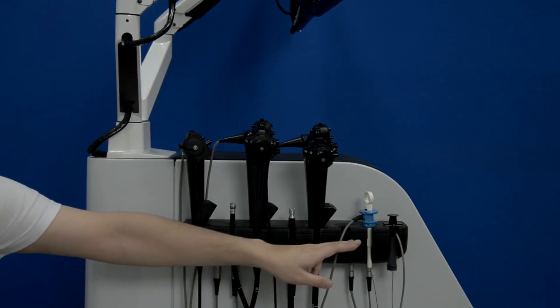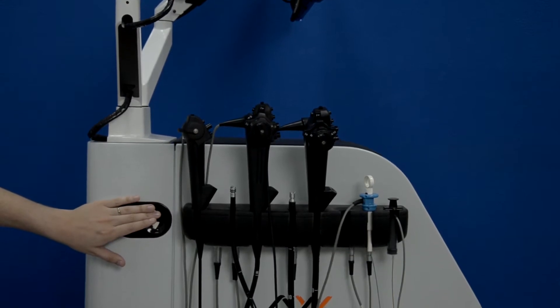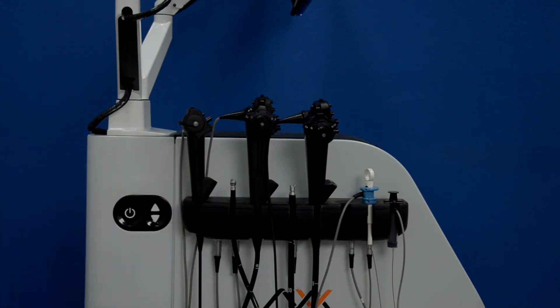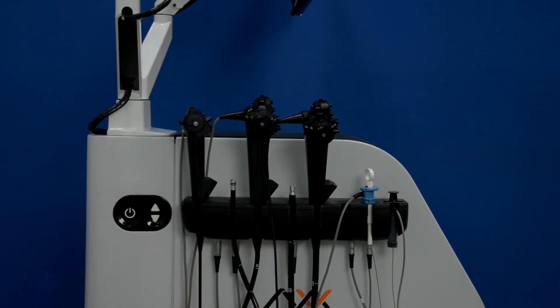Further we have the universal instrument imitator and a syringe imitator. What's important to note is that these are exact imitations of real instruments; however, the flexible parts of the instruments are taken from real ones, so that the behavior of those is completely realistic.